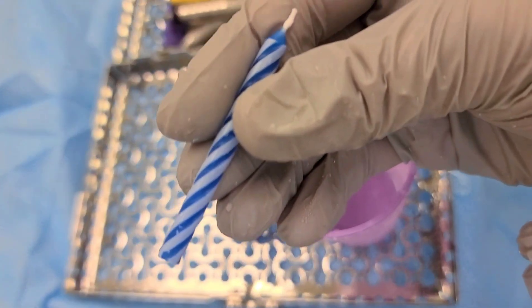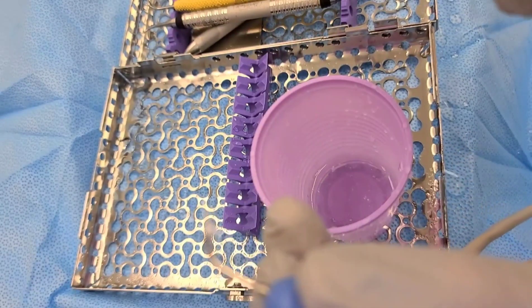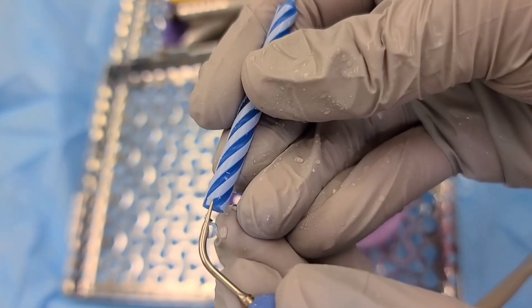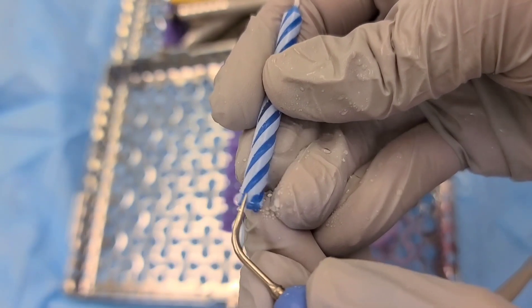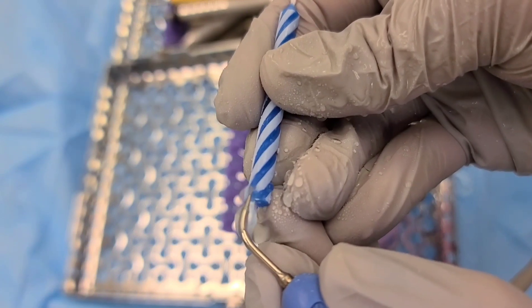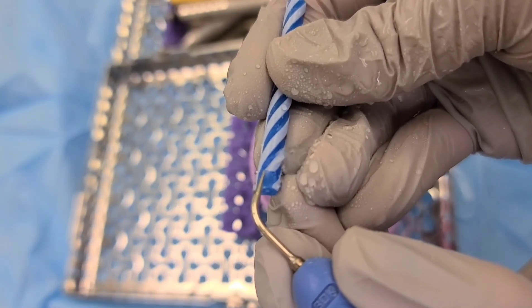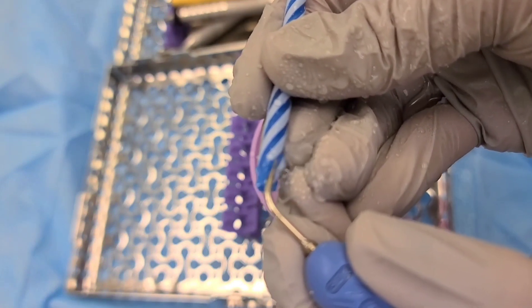Here is a close-up look. Here's my candle and here's my ultrasonic tip, and we're gonna start channeling. As you can see, there is a little bit of pressure involved — I would say it's like feather light. But look how much time I'm spending to channel it. I'm not rushing.